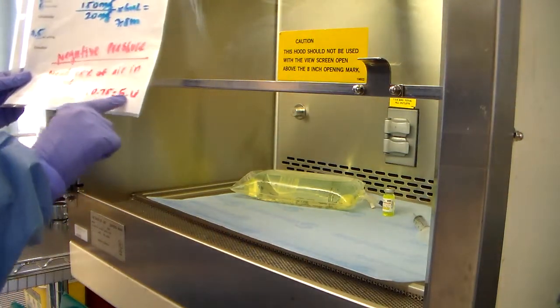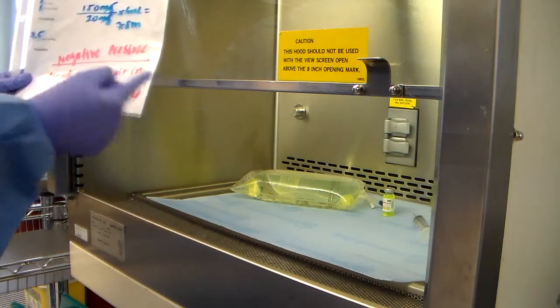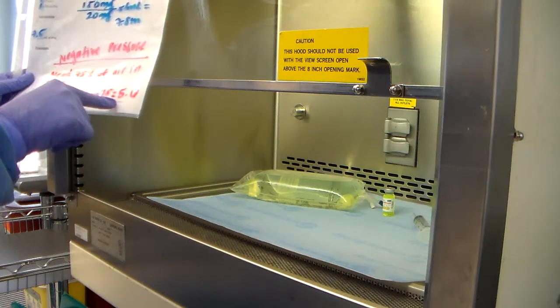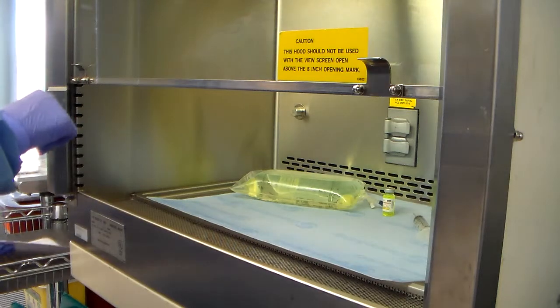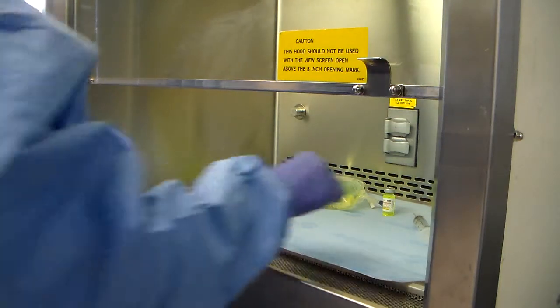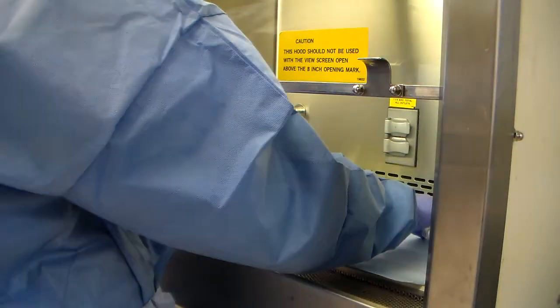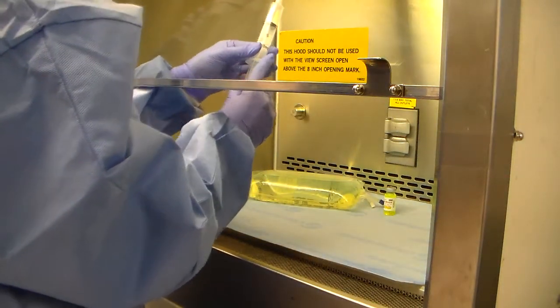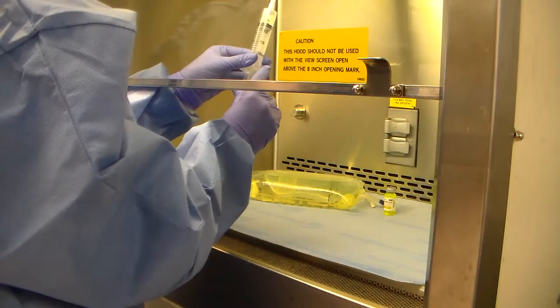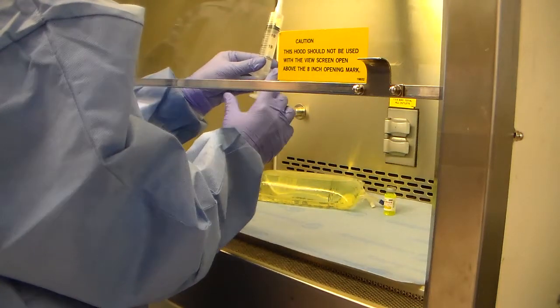Remember, I'm going to need to add 5.6 ml of air into that syringe before I puncture that vial. So my gloves are pretty much dried now. I'm going to go ahead and grab my syringe. And we need 5.6 ml of air. So that's roughly about right there.